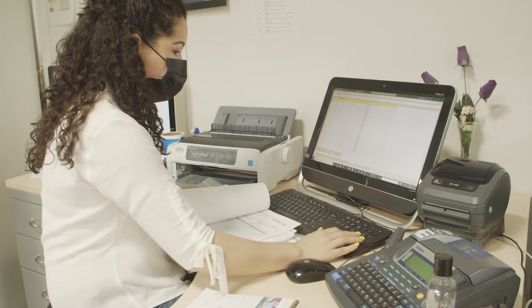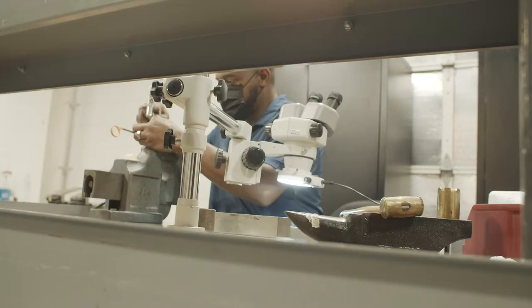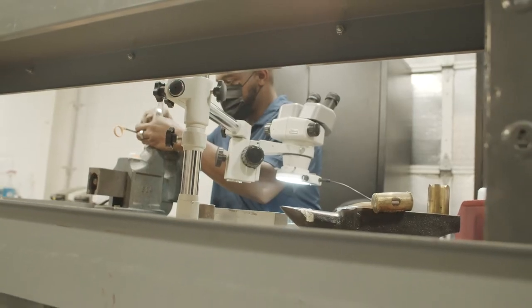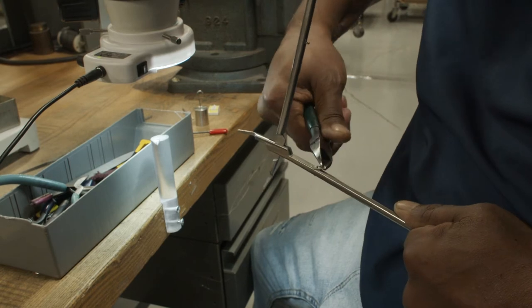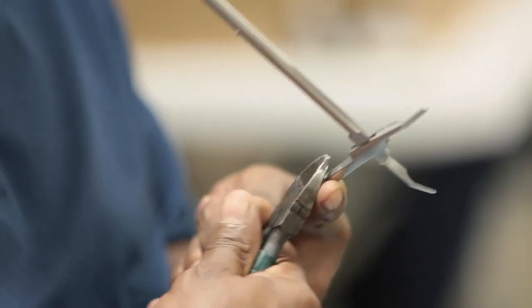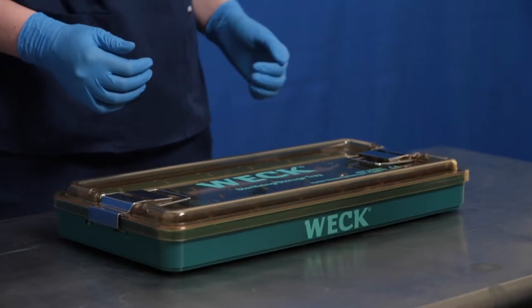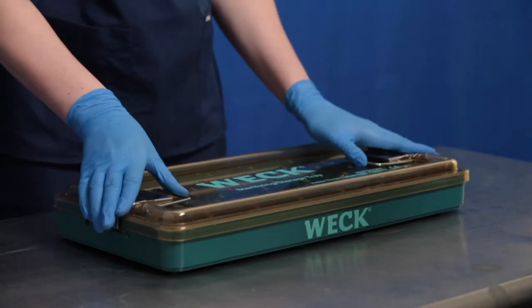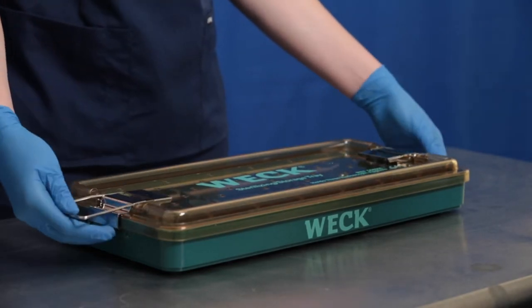We stand behind the quality of our appliers and believe our care and maintenance will help ensure that WEC ligation appliers provide the best possible outcomes. To determine if your manual endoscopic appliers meet the right specifications or need service and repair from Teleflex, follow these steps.